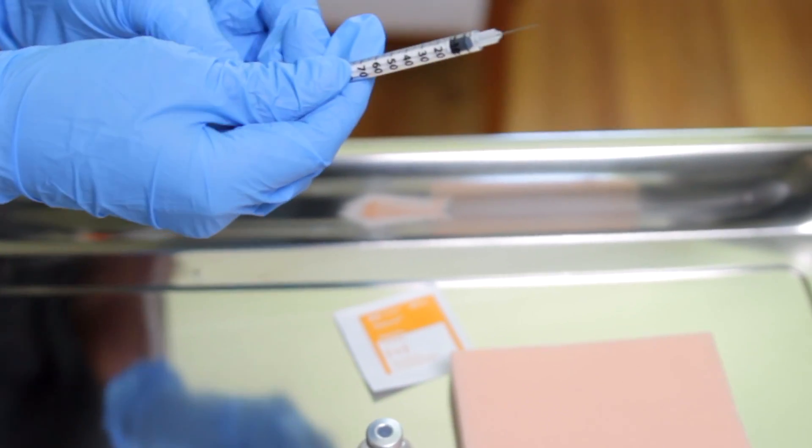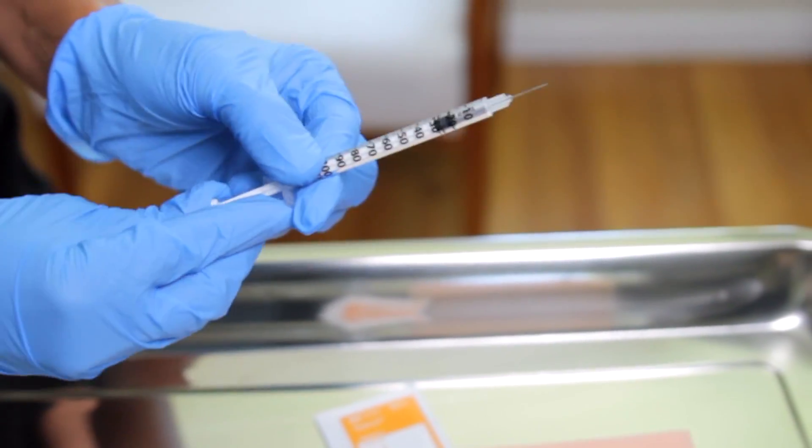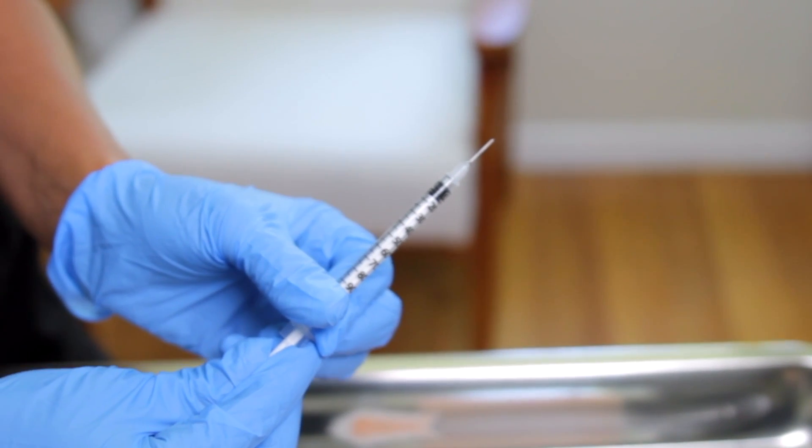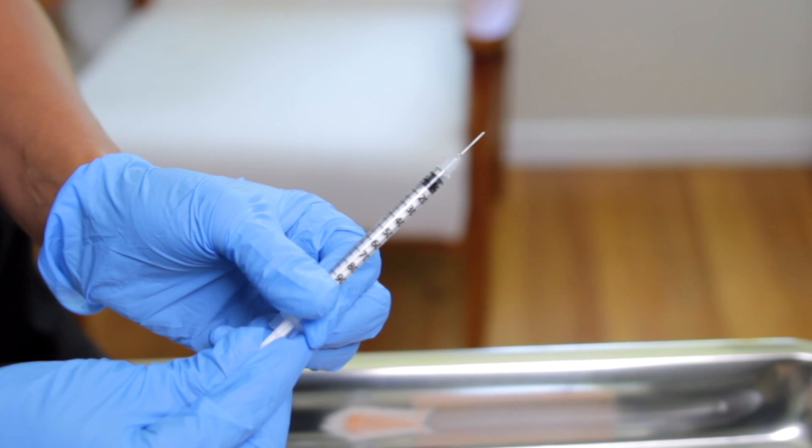You're going to bring the plunger down to where it says, so there's 10 units here. This is five, four, three.